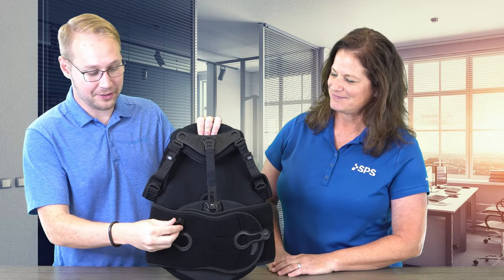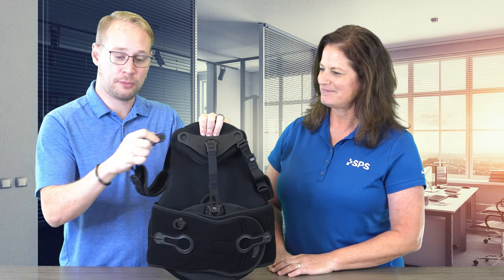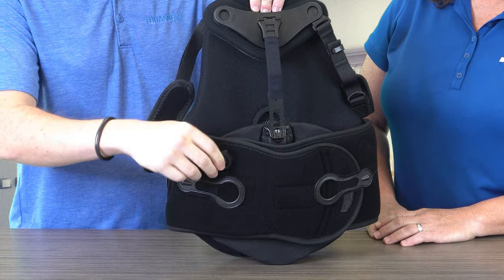Jack, what's the parking garage? The parking garage is our nickname for the strap holder that's down here on the waistline. It's a movable little plastic clip that you can take from the top of the sternal bar, move the strap down there, and move it around for the best fitting for your patient.